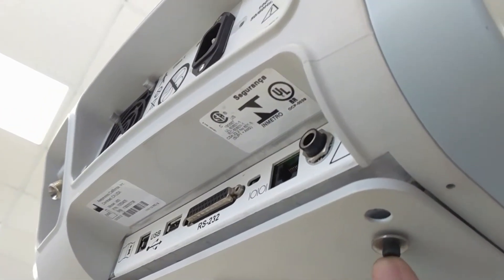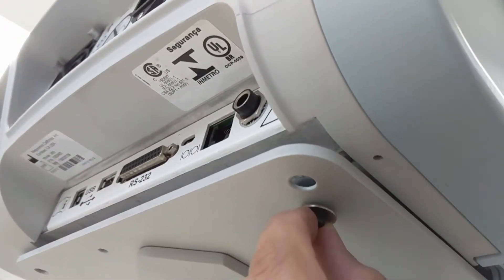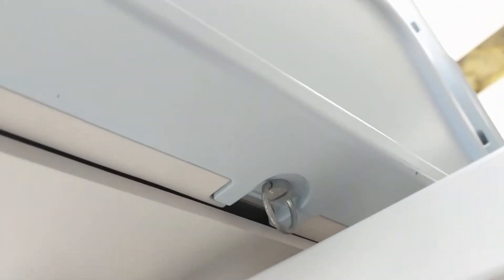Which, if you turn the cart over, you'll have a smaller screw here, and this is the three millimeter screw with the washer from before, and this is the other three millimeter screw with the washer from before.